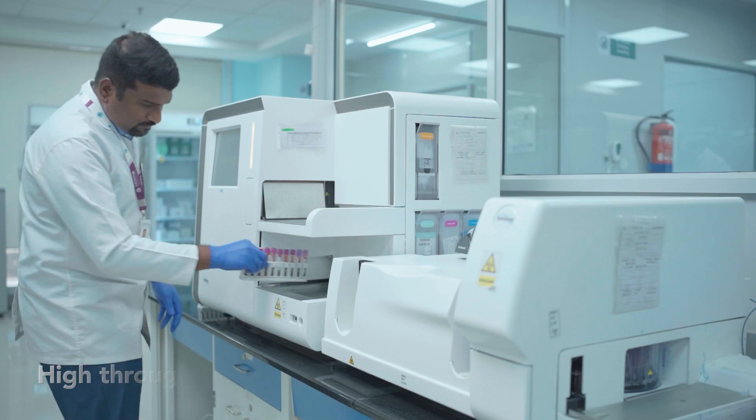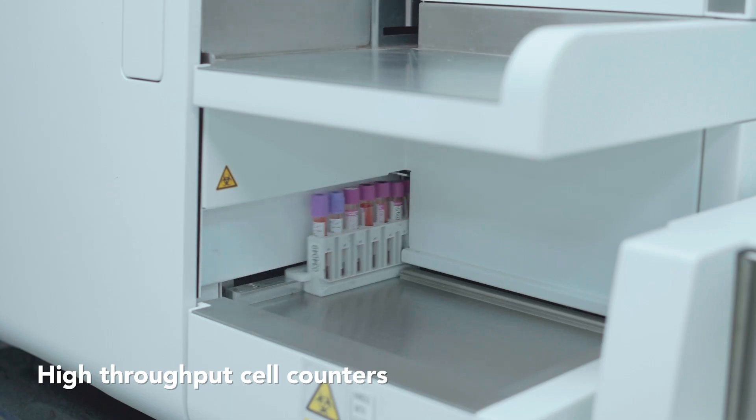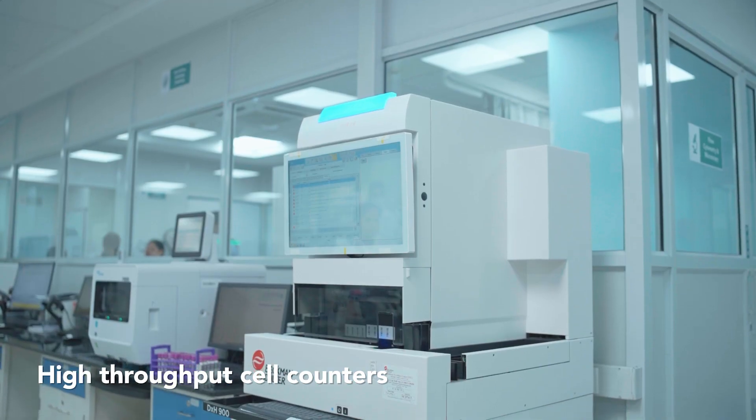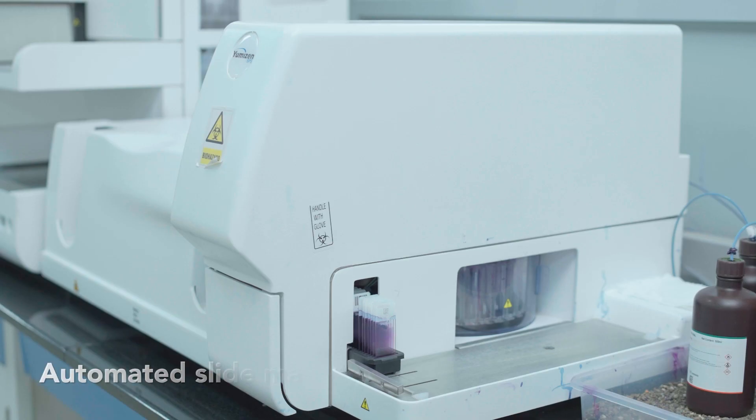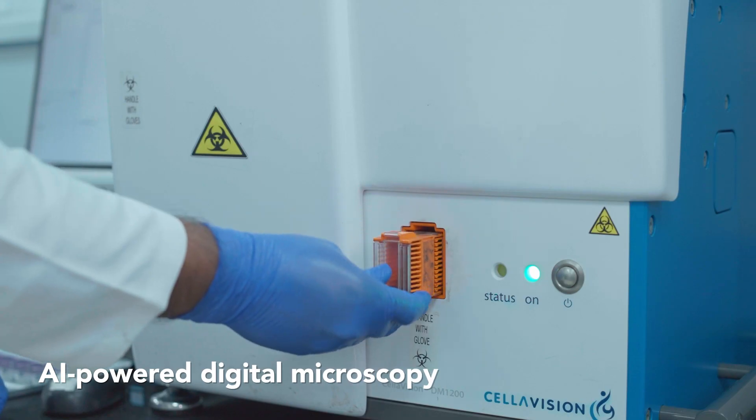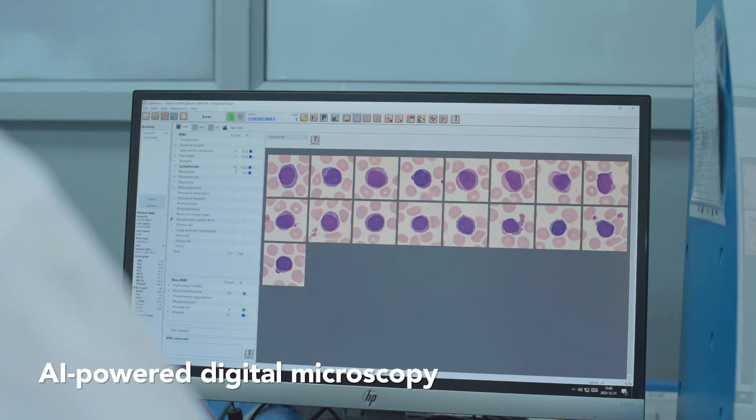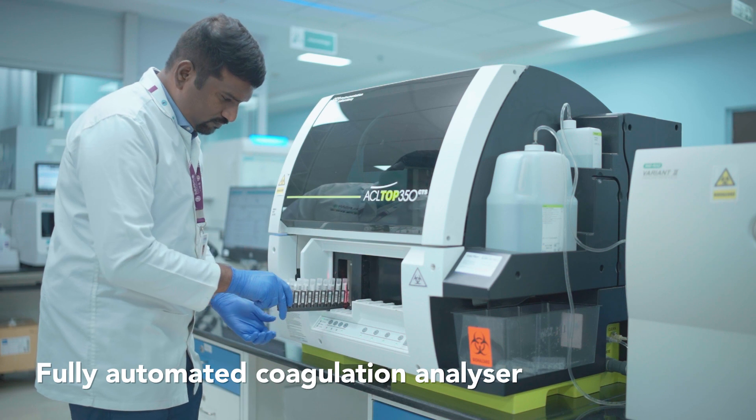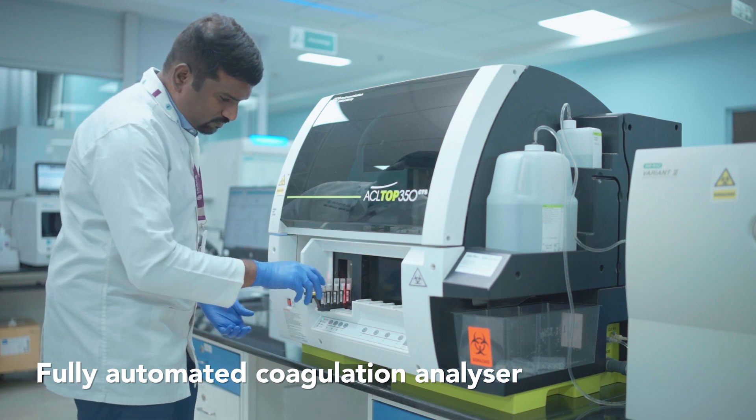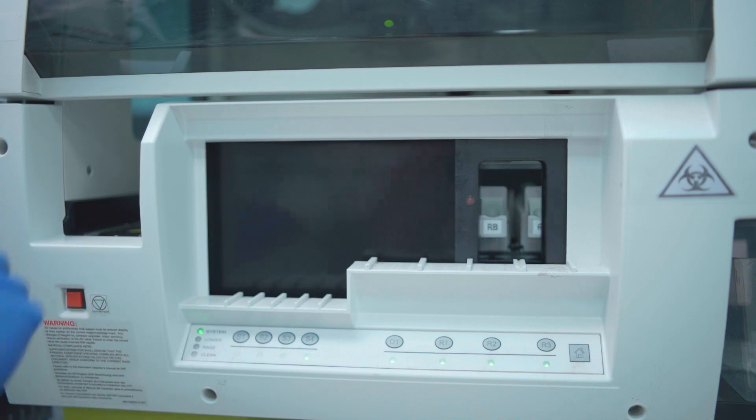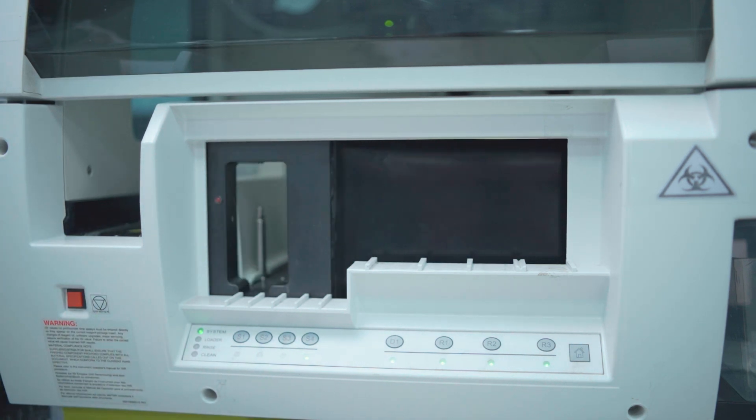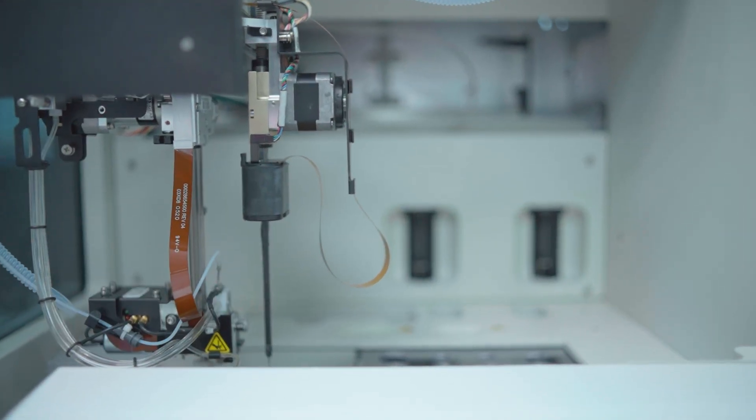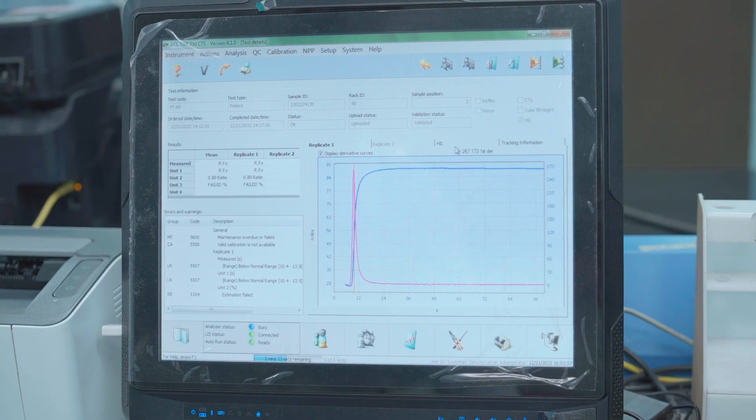Our hematopathology department is built with cutting-edge, high-throughput cell counters paired with automated slide makers and digital microscopy modules that function on artificial intelligence. Our expertise extends to coagulation with comprehensive testing available to diagnose all cases of thrombophilia using a combination of traditional and molecular assays.